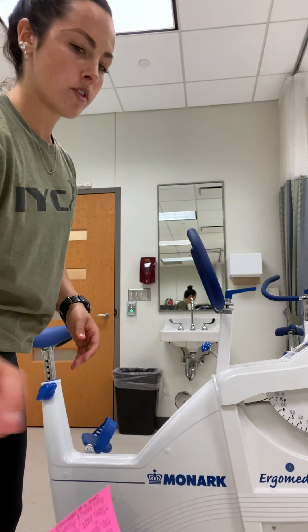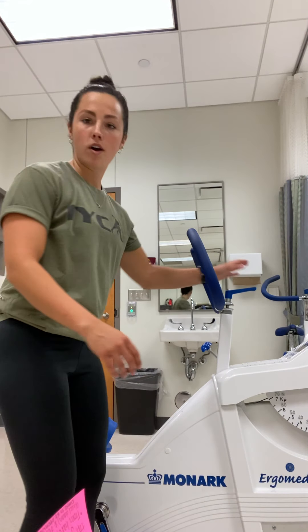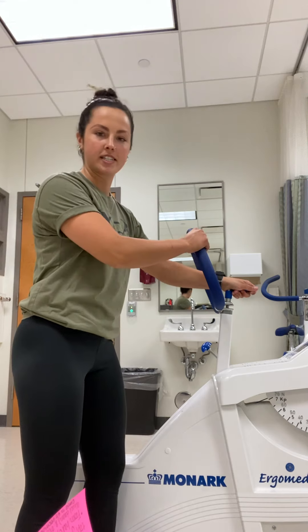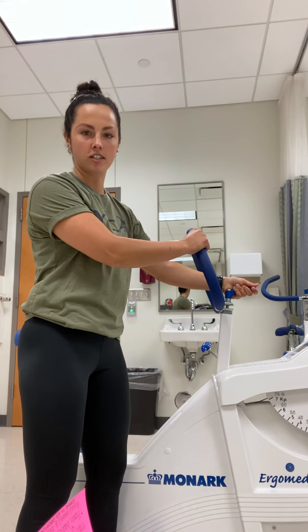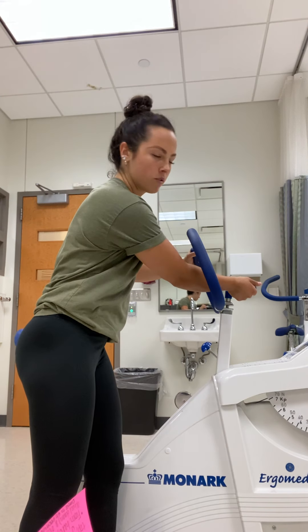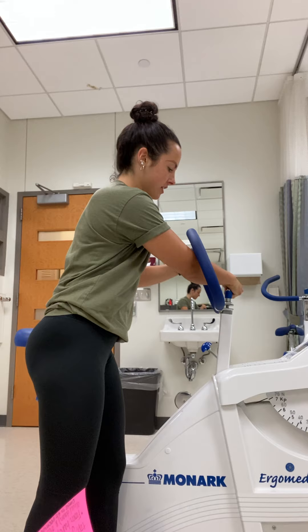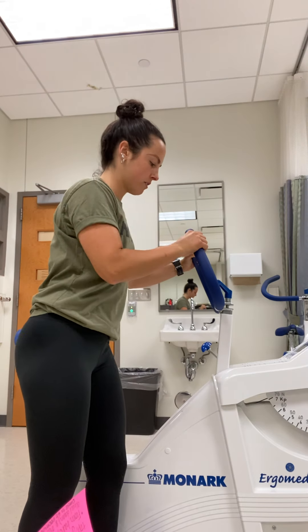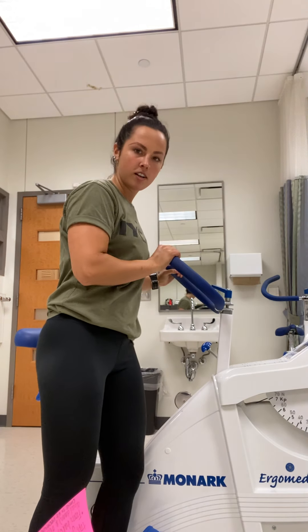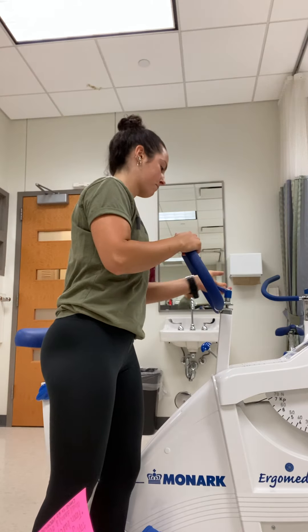Also worth mentioning — you can adjust the handlebars if it's uncomfortable for the client. There's a handle at the top that you can move, and the handlebars will adjust up and down depending on what they need.